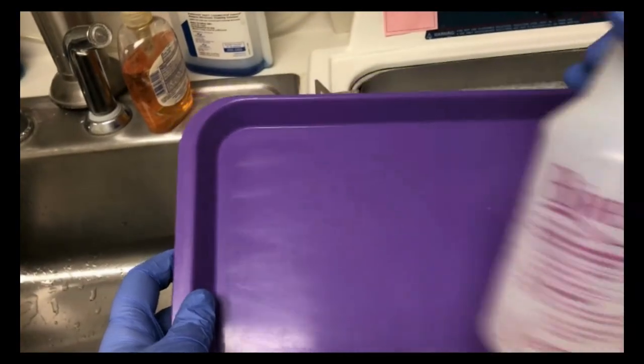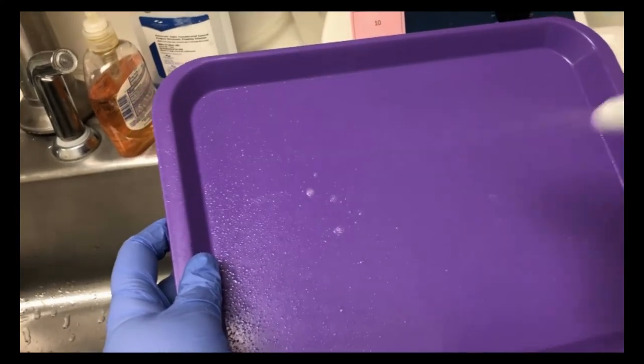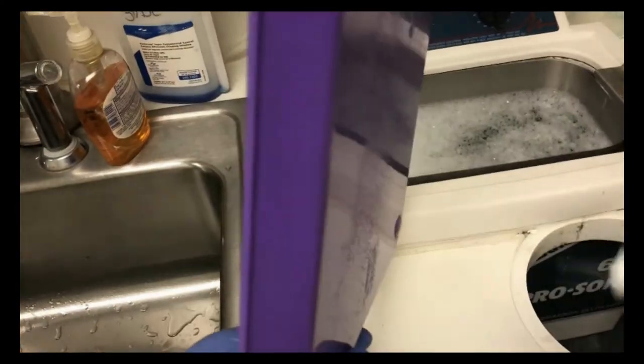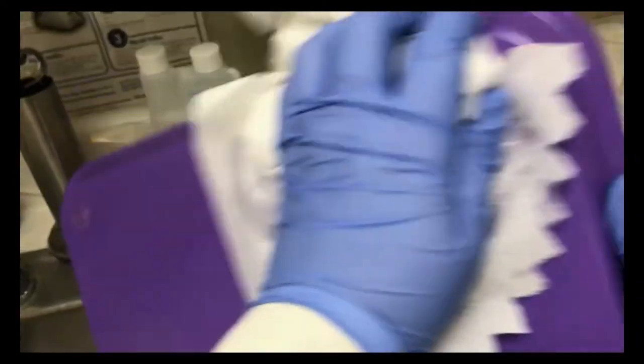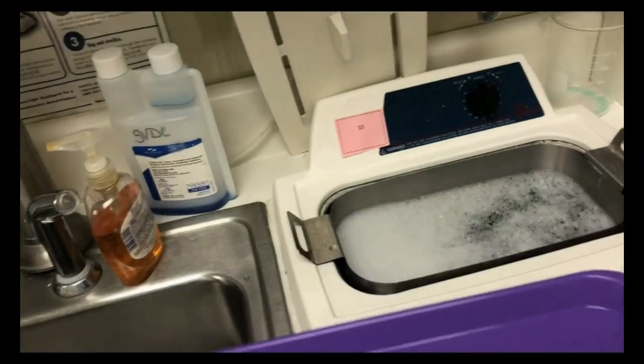Take an intermediate level disinfectant and disinfect the patient tray. Wipe the tray down with paper towel and then respray the tray with the same disinfectant. The first spray and wipe cleans the tray. The second spray disinfects the tray.